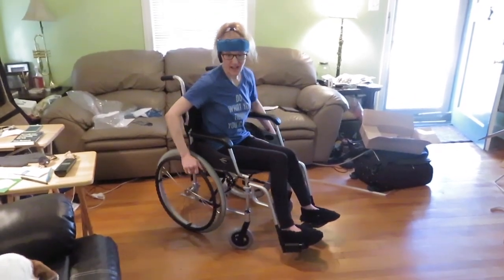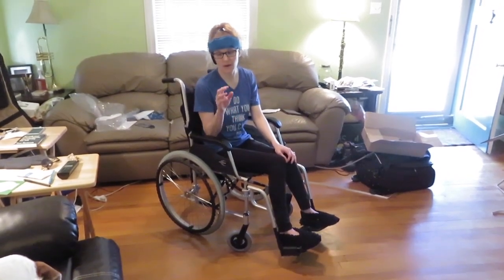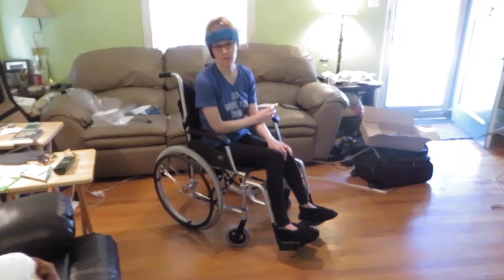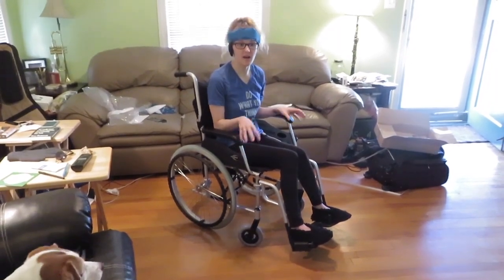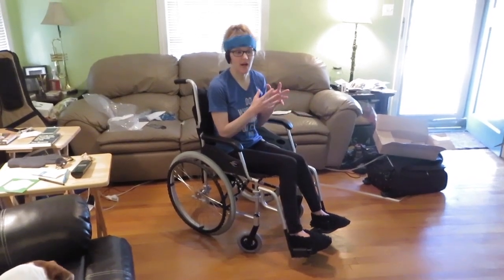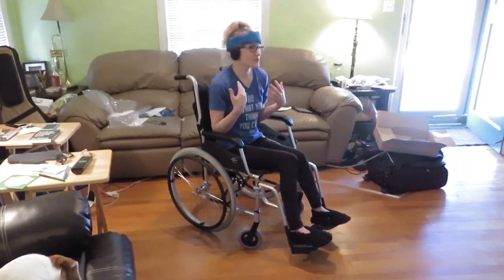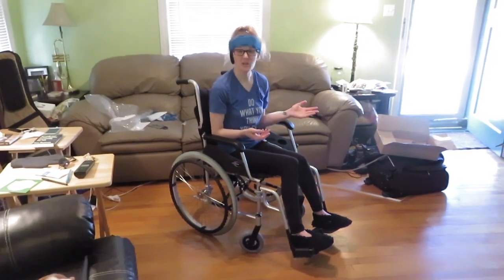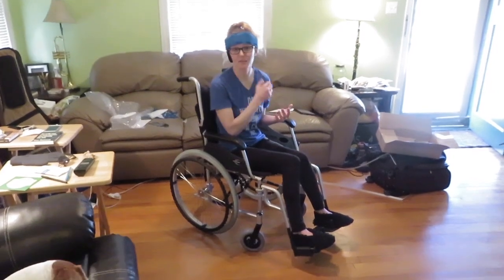I'm going to take it for a spin myself. First, I wanted to say to people who may not know — I don't have to use a wheelchair 100% of the time, but I do have to use it when we're outside the house. I set aside my pride four and a half years ago and I'm using the wheelchair as a tool for as long as I need it, because that's what it is. There's no stigma attached to it for me. I do get looks in public, but it doesn't bother me.